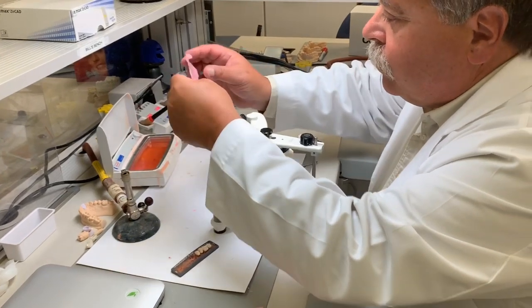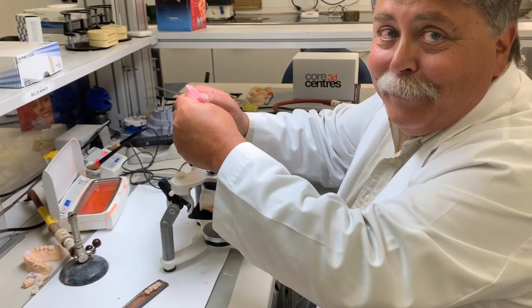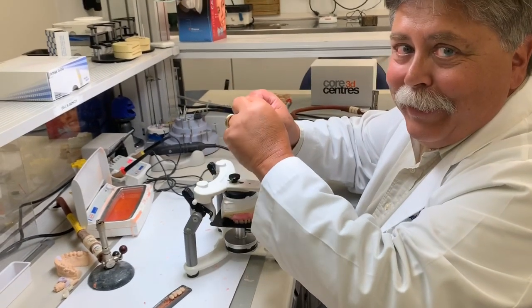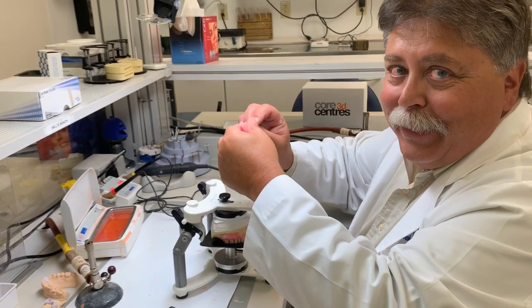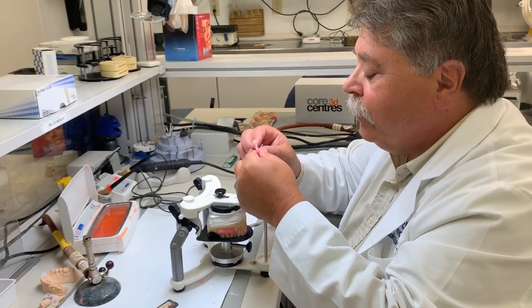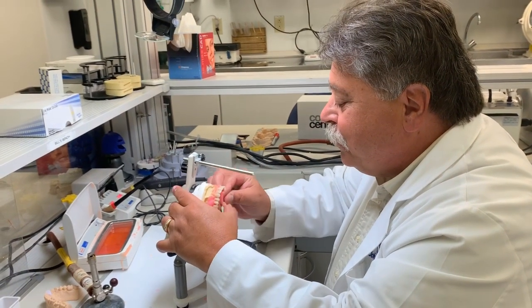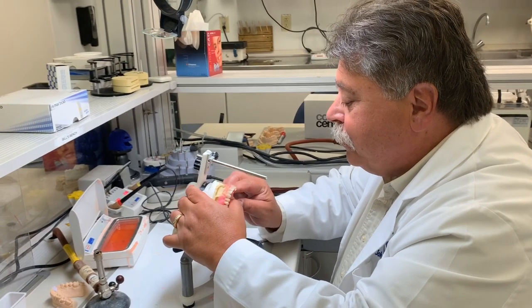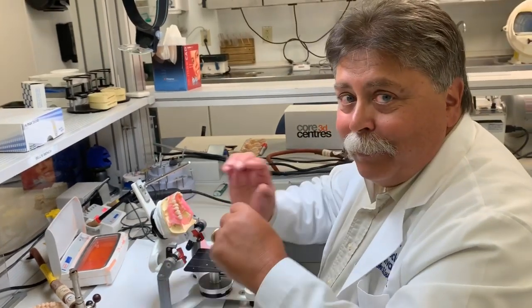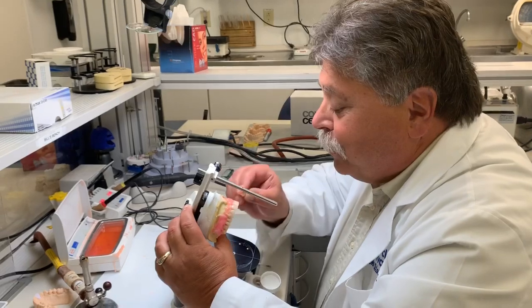My phone had actually stopped recording, so I missed the part where you said that you have all sorts of teeth that you can place in. Oh, so John had said they can place many different types of teeth, many shades, but they don't technically do rainbow, I asked. But they can put little rubies in there, diamonds, gold teeth. They have had that requested, so if you're watching this and are interested in that, then it's definitely possible. It's something to ask for. Yes.